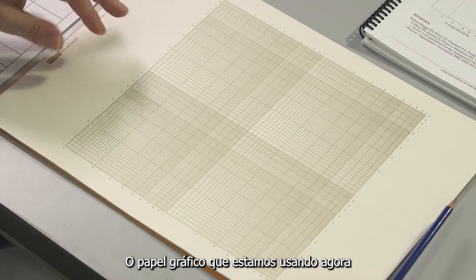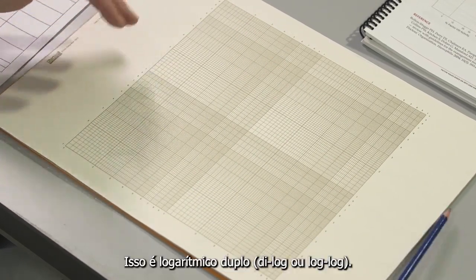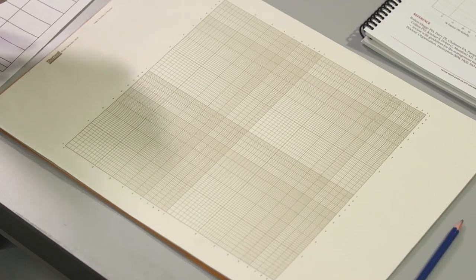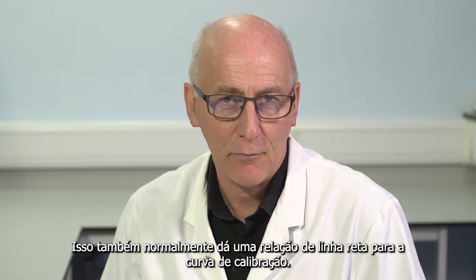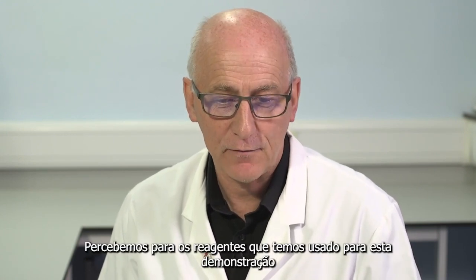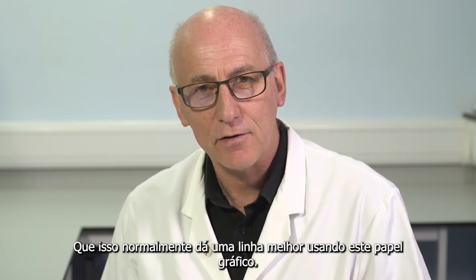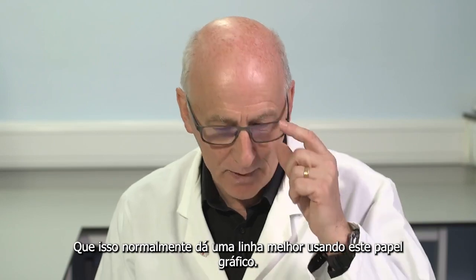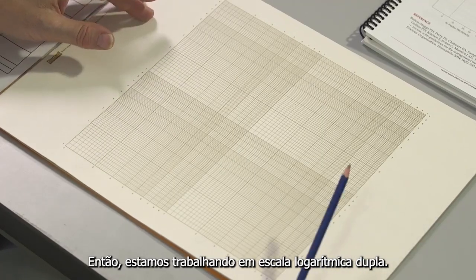The graph paper we're using just now for the calculation for the one-stage factor VIII is double logarithmic. It's acceptable to use log linear paper. This also normally gives a straight line relationship for the calibration curve. So either can be used. We're using log just now. We noticed for the reagents that we've been using for this demonstration, this normally gives a better line using this graph paper. So we're working on double logarithmic scale.